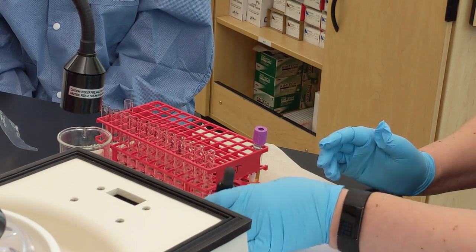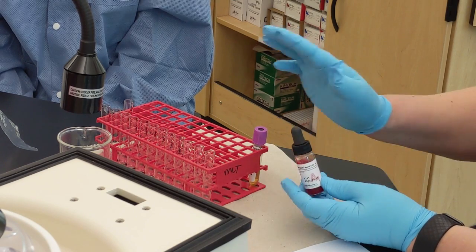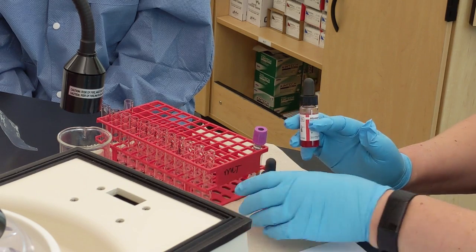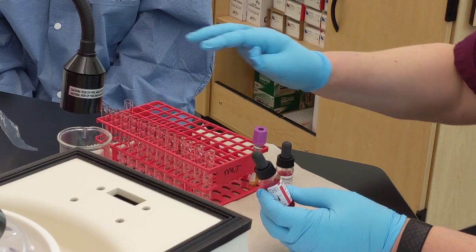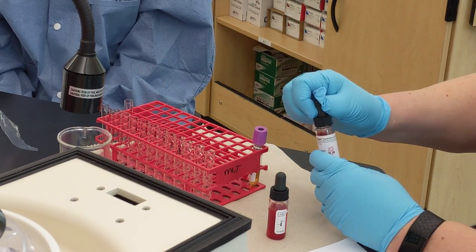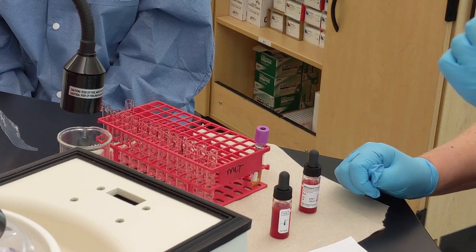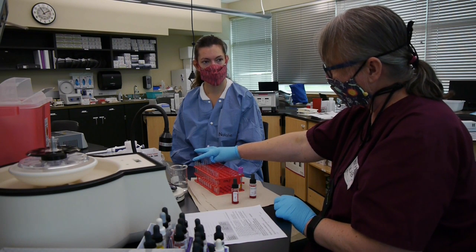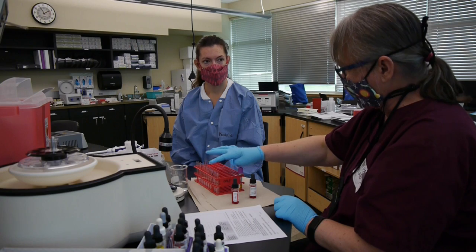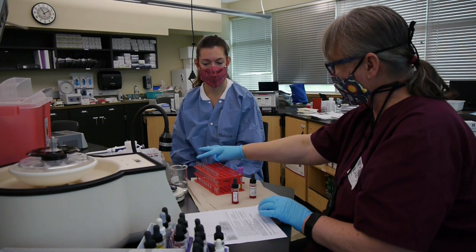Once the dilutions are done, you need to find cells that correspond to the antibody you're measuring. For a titration, you always want to use a homozygous cell, so our reverse typing reagents — A1 cells — are what you'd add a drop of into each tube. Set up the same thing for anti-B with B cells and the same dilutions. After adding cells and spinning, you're going to read and record. Read from the highest dilution backwards to the lowest — it's easier psychologically to go from a negative reaction toward agglutination.